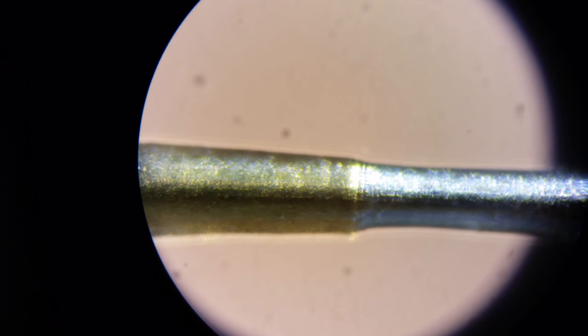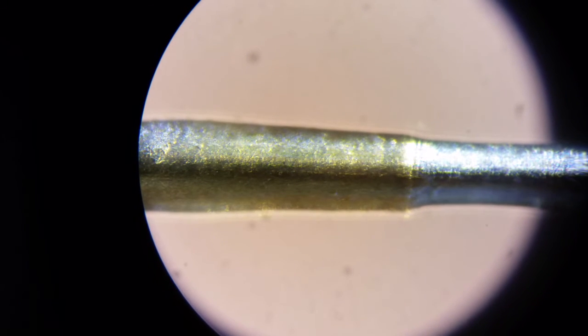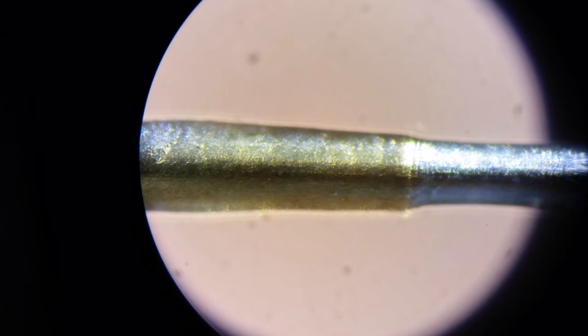This is the area where, like again, the video I'm going to link, this is a substance that basically lets, it's broken down by glucose or reacts with the glucose and it gives off hydrogen peroxide, which then has a chemical reaction with the difference between this coated section and the uncoated section.